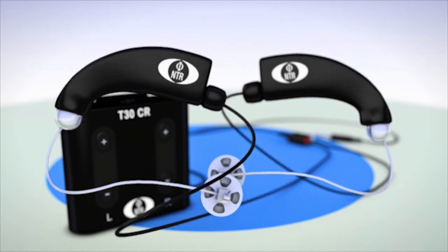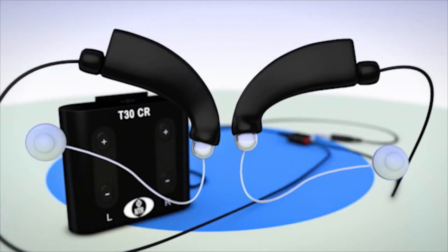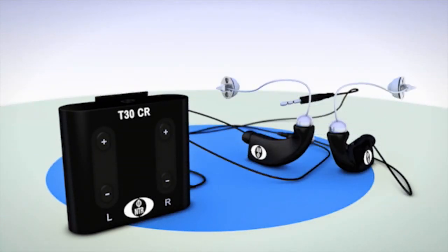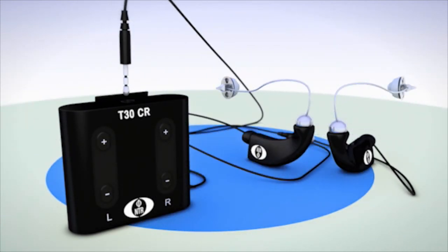Worn for about four to six hours a day, the device is comfortable and inconspicuous, allowing the treatment to be easily integrated into the patient's daily routine.